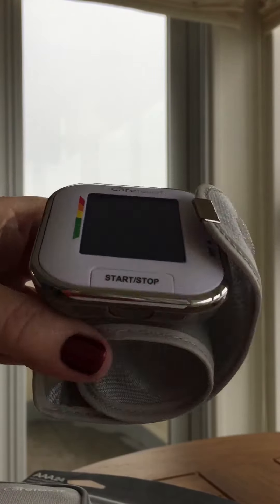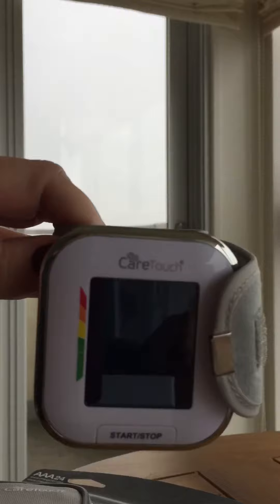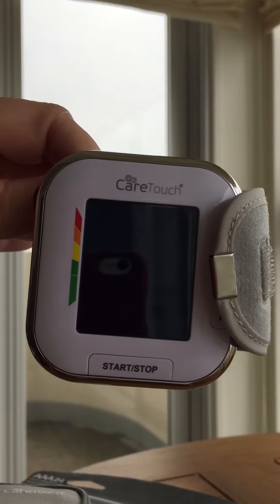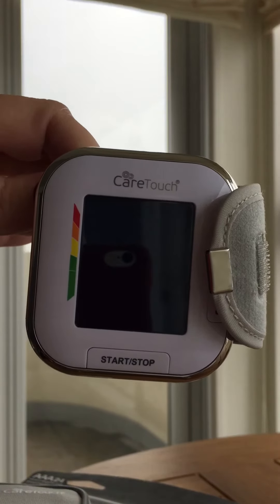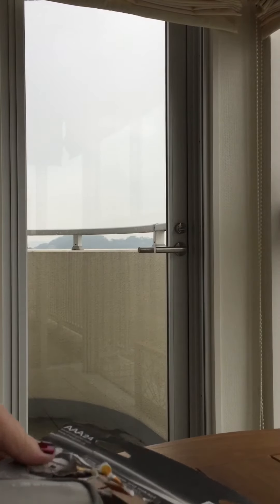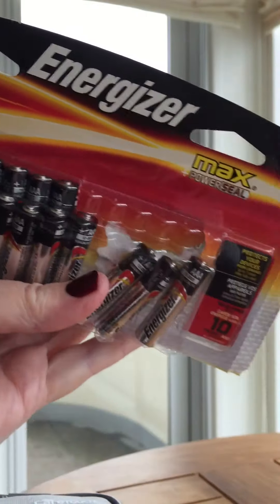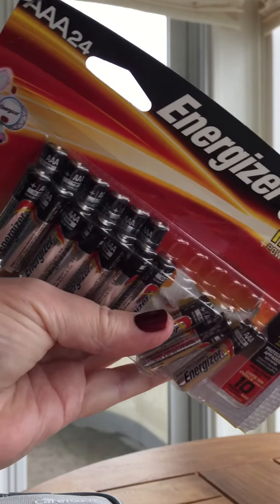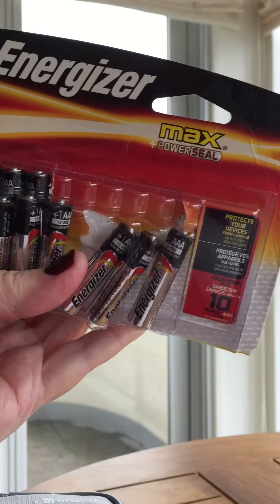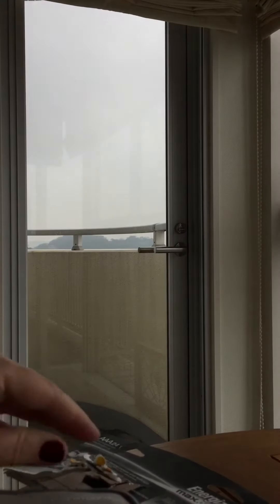I'm using it once or twice a day — once in the morning, once in the afternoon. I'm not knocking this cuff; it is absolutely awesome to just quickly slip it on and take my blood pressure. But I would highly recommend that you invest in either a large multi-pack of AAA batteries or at least two sets of rechargeable batteries, since it uses two at a time.